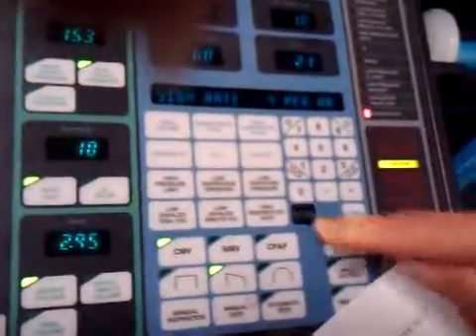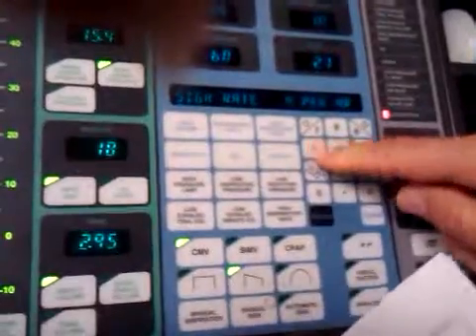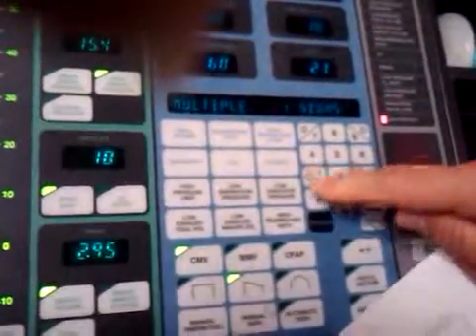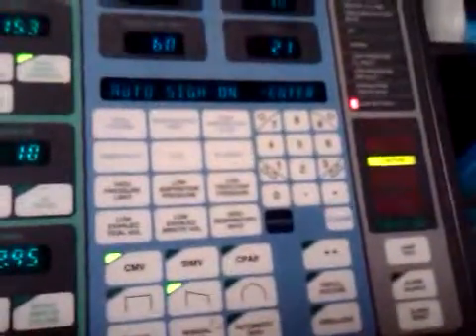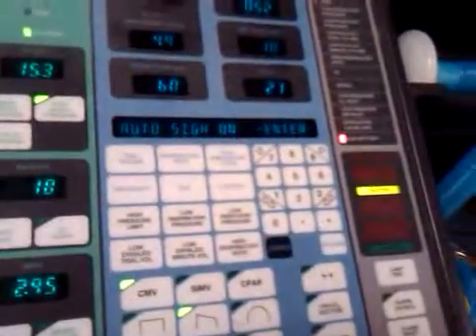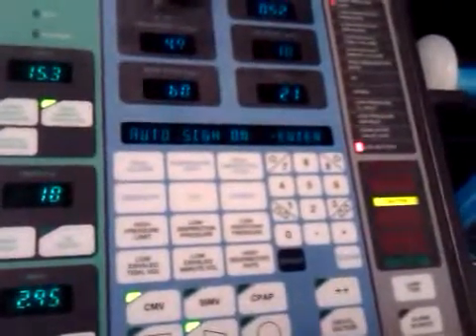Enter. Sigh rate, I want 4 per hour. Enter. Sigh multiples, I want 1. Enter. Update parameters. Enter. So we're just missing the 50, basically. Yeah, if you were setting that up in real life, that's what you would do. But if I asked you to write it out, this is the way you would write it out.